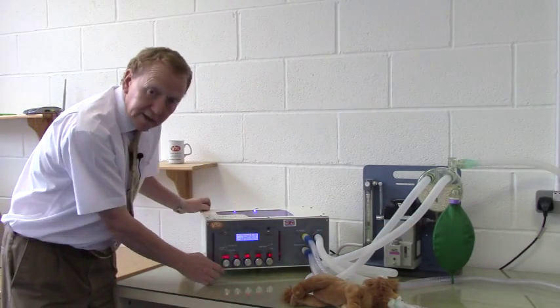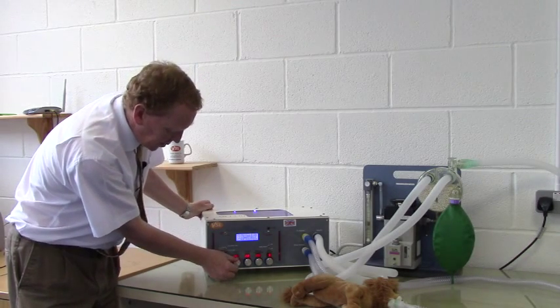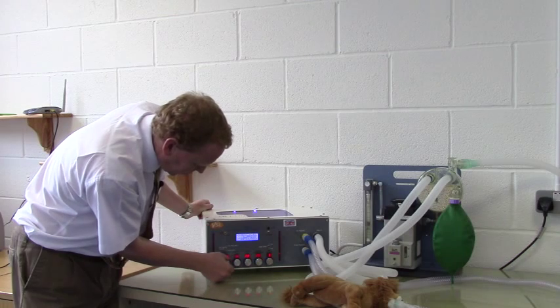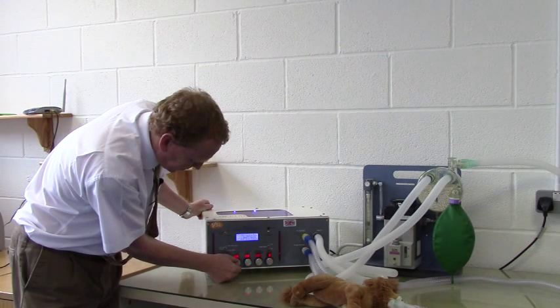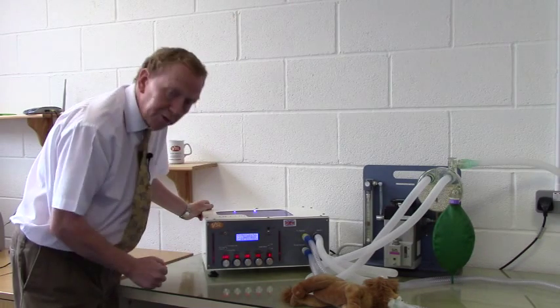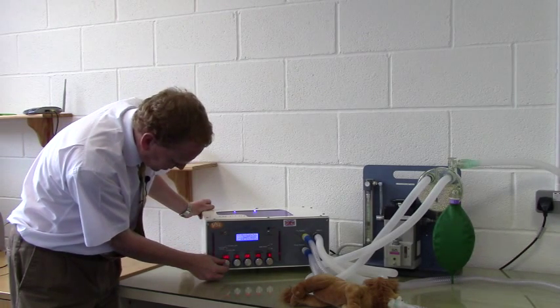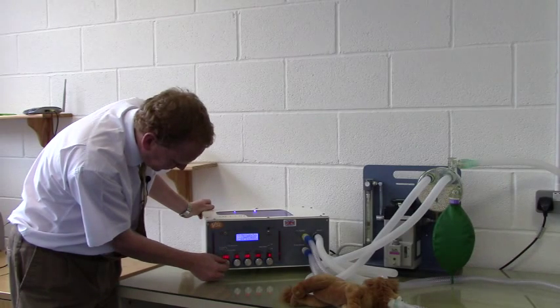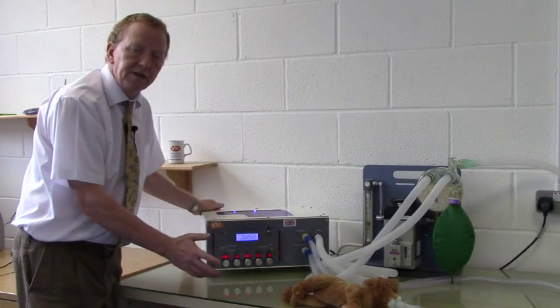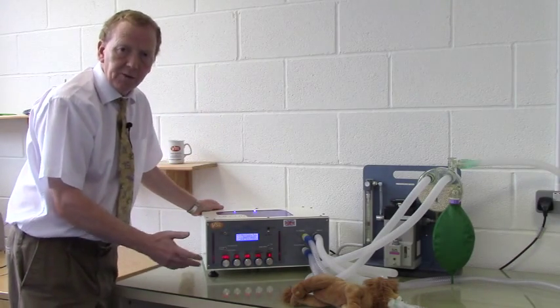On Merlin, to set the tidal volume and work in volume mode, we must have an inspiratory time set. The inspiratory time, for most purposes, will be adequate when set to one second. So we set inspiratory time to one second. Our tidal volume is in mils and we said it would be 200, so we set that to 200. At the expiratory time, we want an IE ratio initially of greater than one to two, so I would set it between two and three. At the moment it's set to 2.8, which is fine.